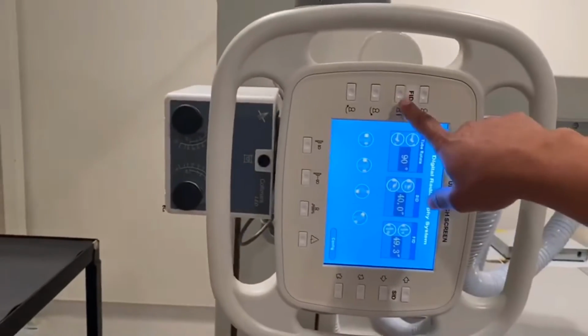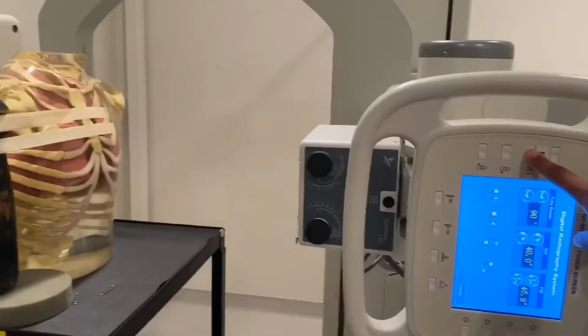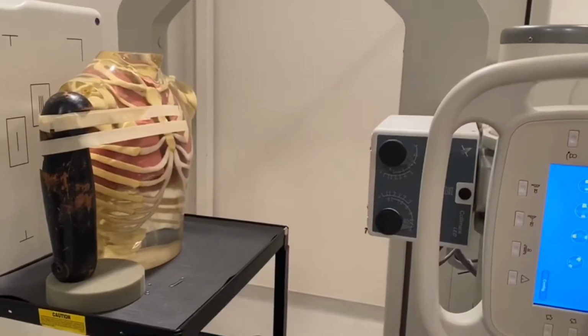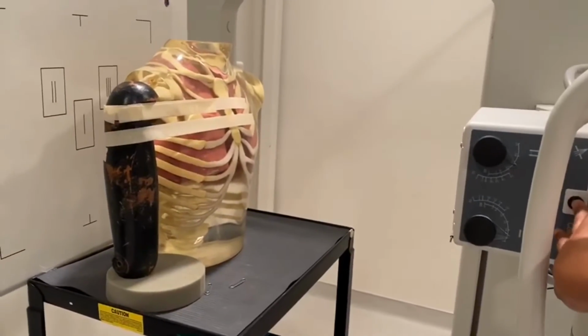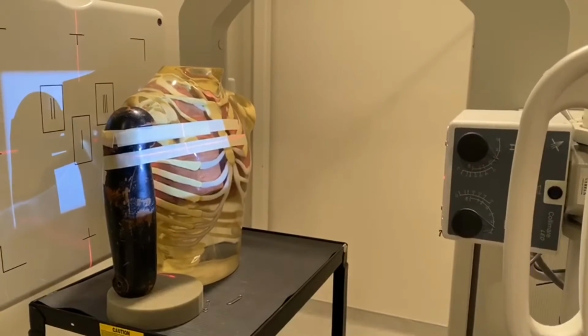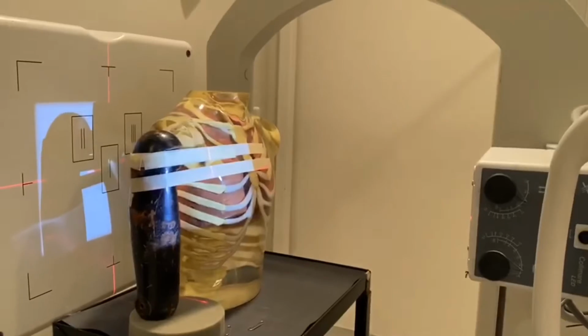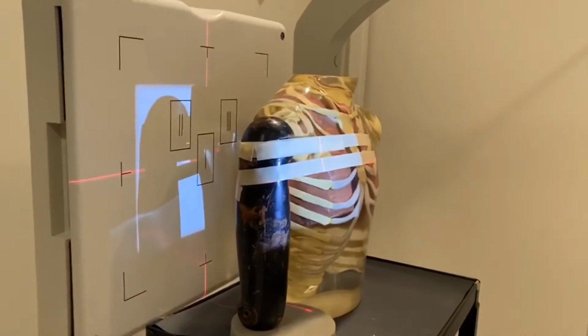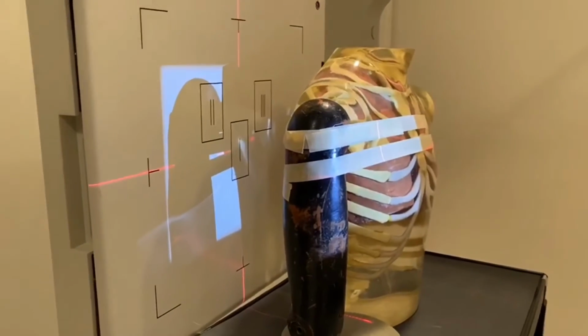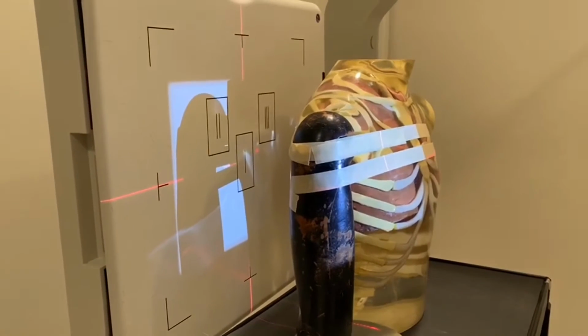And then the FID here will bring your tube up and down. What that does is help you to center to the patient's coracoid. So that's going to go up and down to allow you to adjust your CR. The chest phantom is already here with the humerus attached to it. We're not going to manipulate that very much. I may pull it out a little bit so you can reposition.